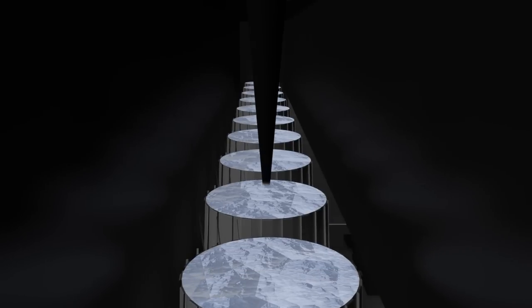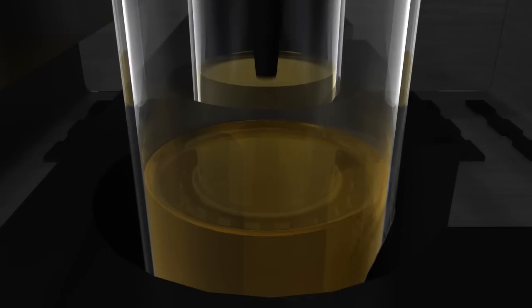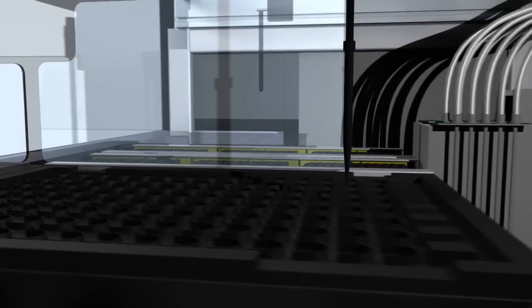During the sample pipetting process, the pipet tip pierces the cap, which has been designed to prevent cross-contamination and to ensure precise pipetting of the sample.